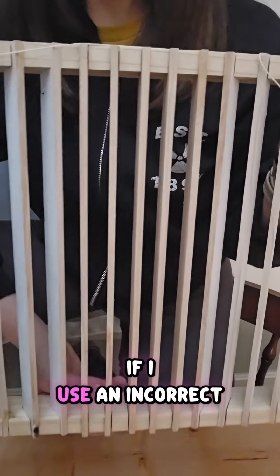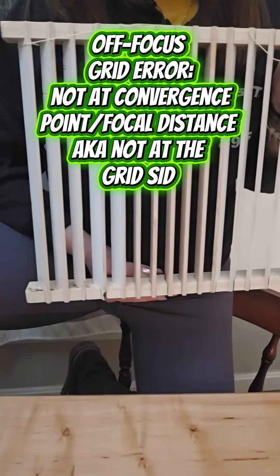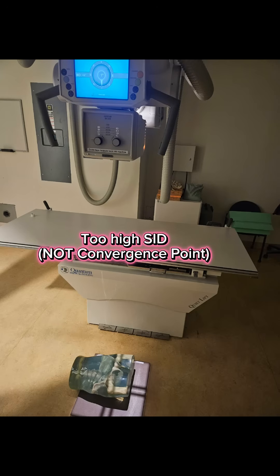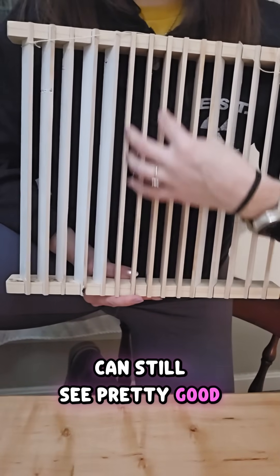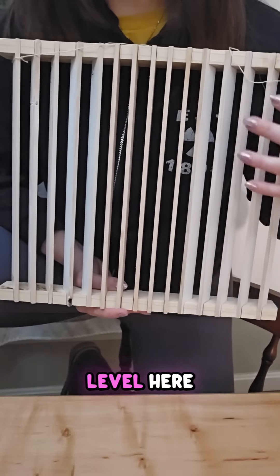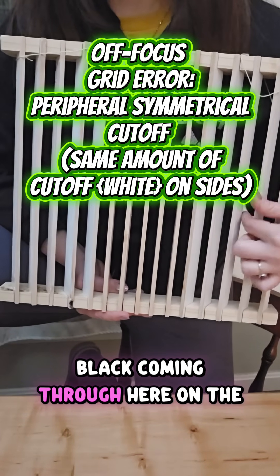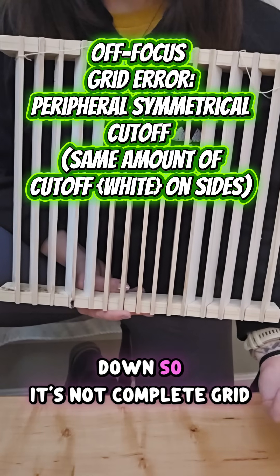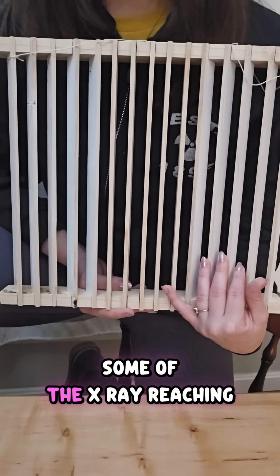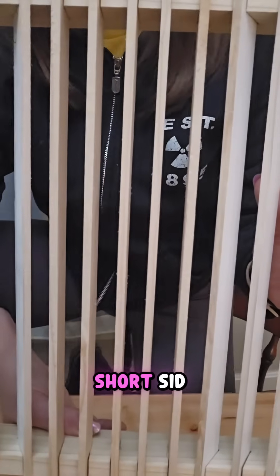If I use an incorrect SID — I purposely wore black for a reason — look at what happens to my sweater. You can still see pretty good right through here in the middle, but then you can still see some black coming through on the sides. So it's not complete grid cutoff, but it definitely did reduce some of the x-ray reaching the sides. If I did a really short SID, same thing.